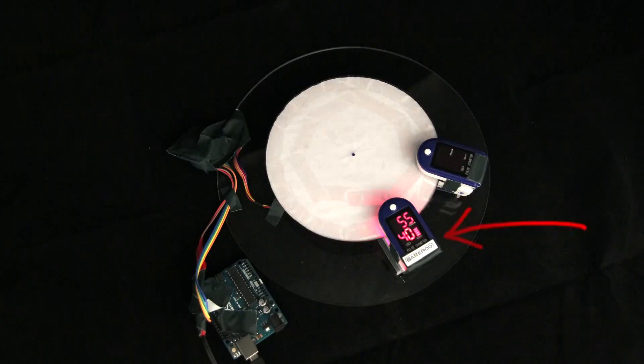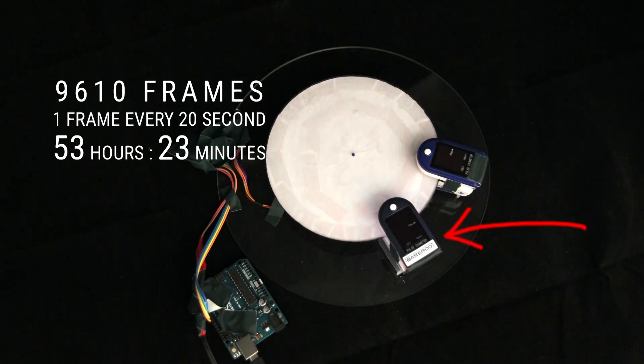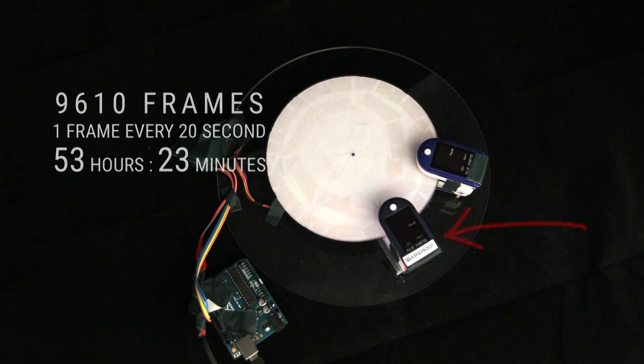The oximeter with Batteroo continued working, reaching 9,610 frames, which translates to 53 hours and 23 minutes.